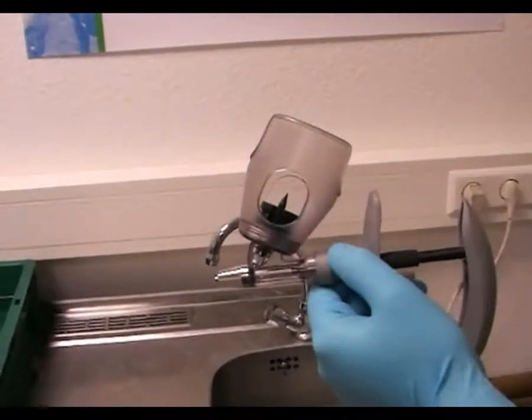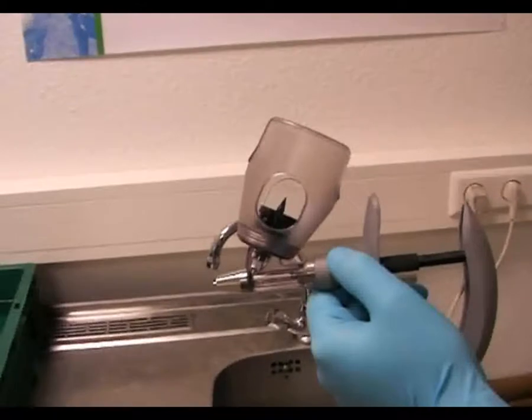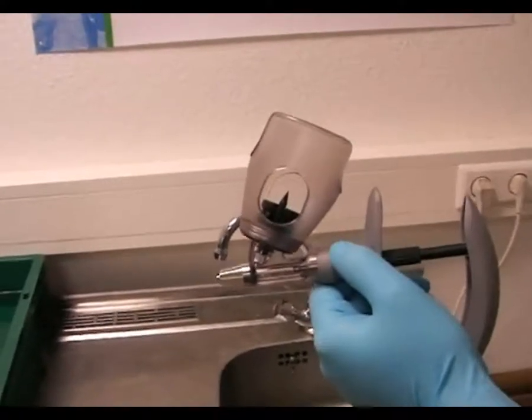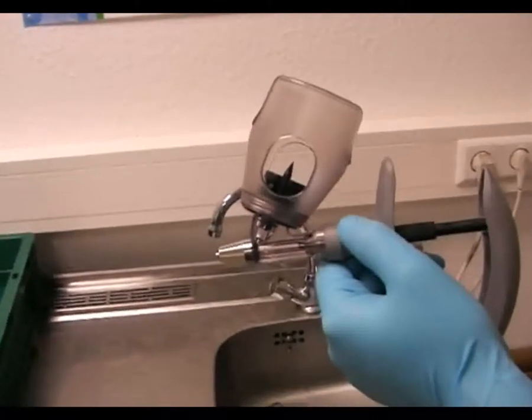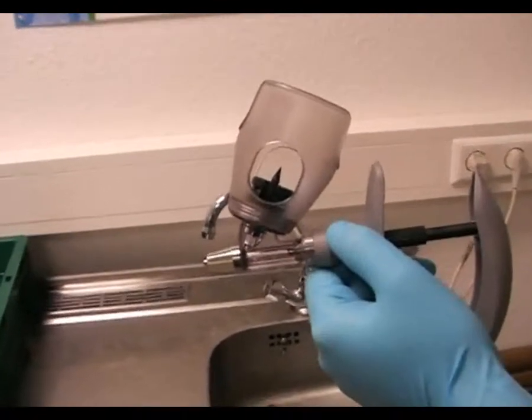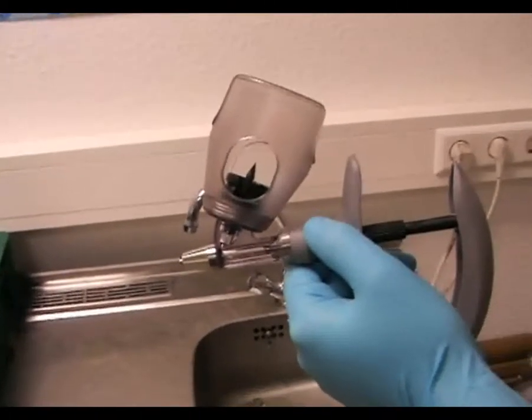Die Ausführung 0,3 ml ist eine robuste, hochfeste Kunststoffspritze mit Metallkolben, ausgelegt als Selbstfüllerspritze für den robusten Einsatz. Wir möchten hier kurz zeigen, wie die Spritze eingesetzt wird.